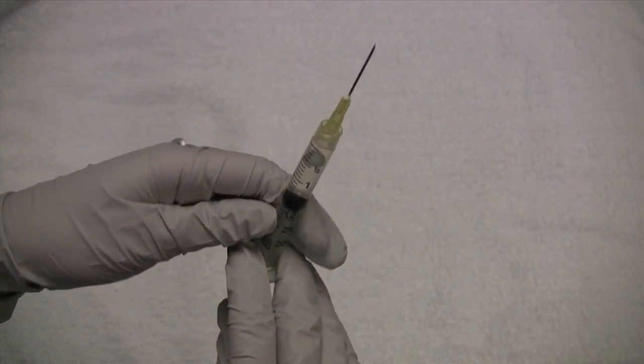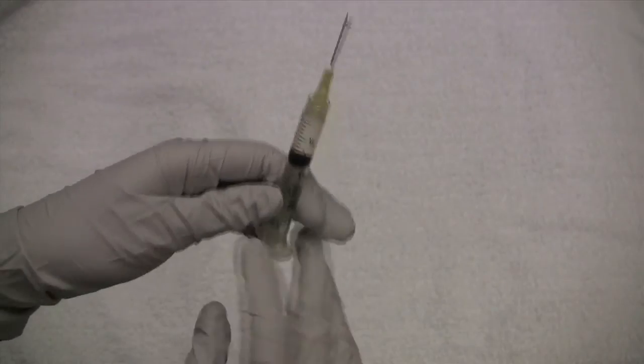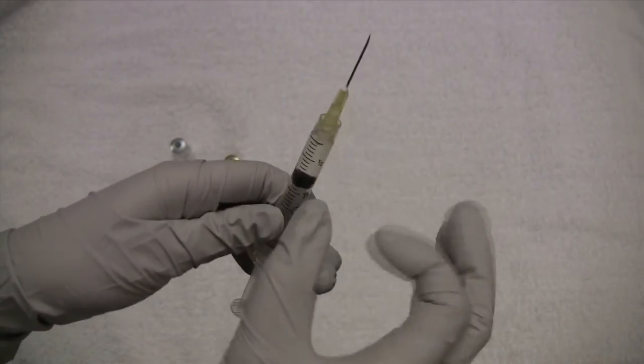I'm going to push out some of this air. And now we have 1 mL, which equals to 1 mg of glucagon.